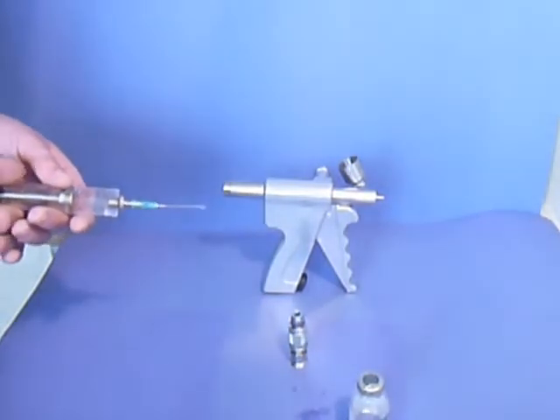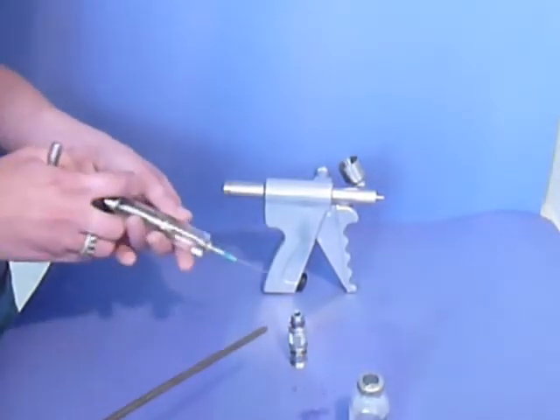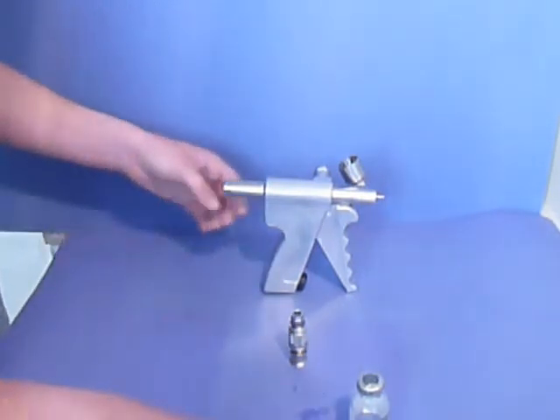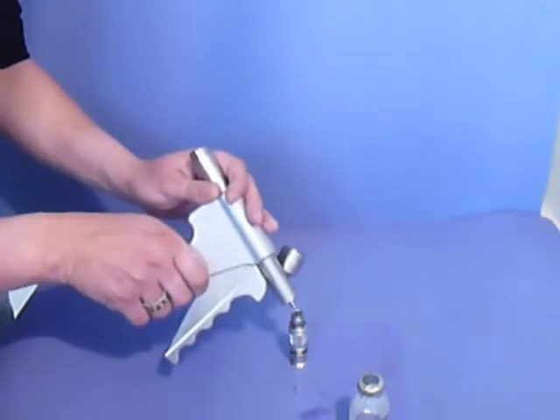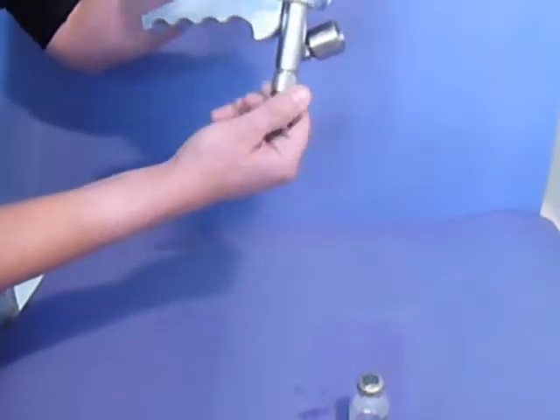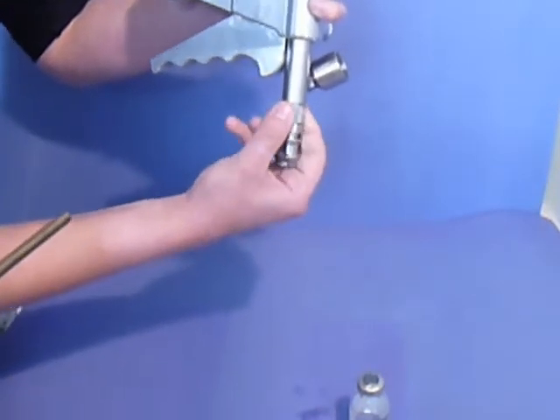So the first thing to do is to fill the back of the head with liquid. Then you hold the automatic vertically, still vertically, you screw it vertically.